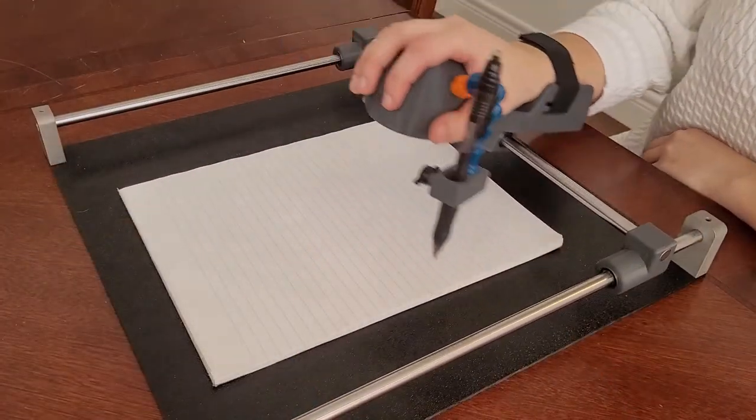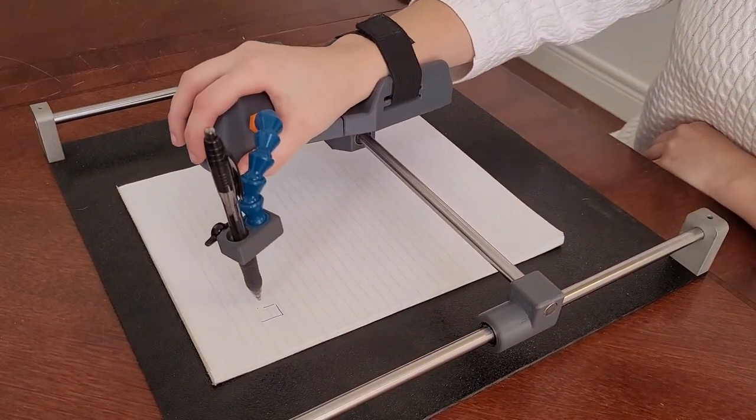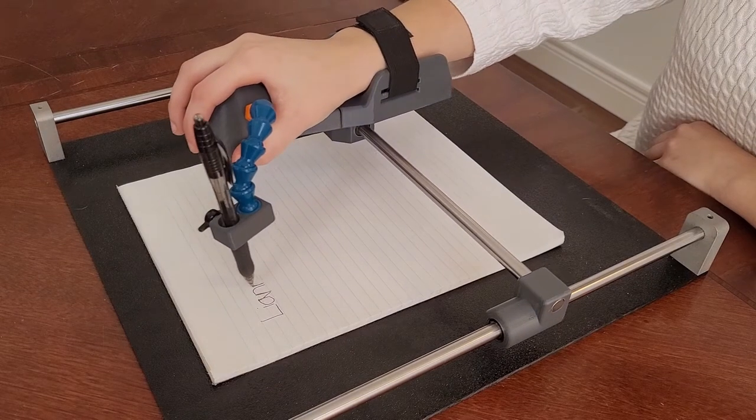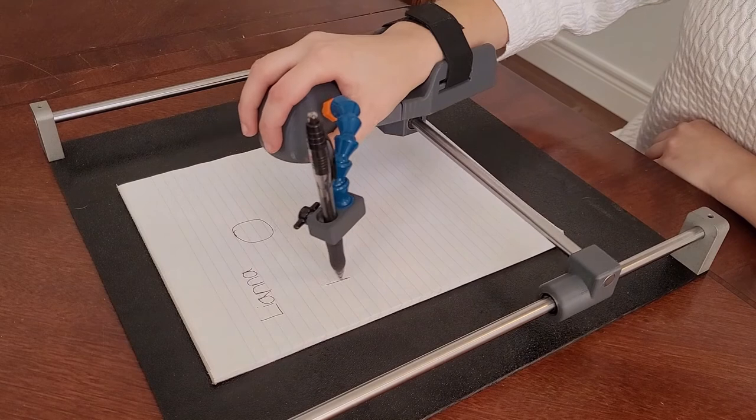For best results, practice performing different hand movements using Guided Hands in order to familiarize yourself with the sliding system. Write your name, draw shapes, and move around all corners of the page to explore your range of motion.